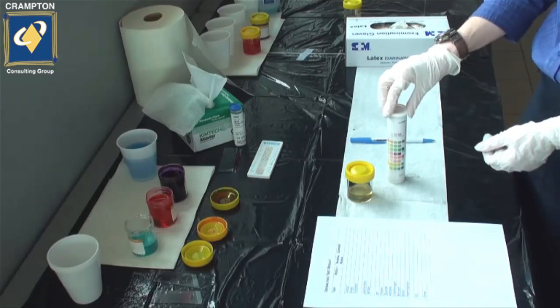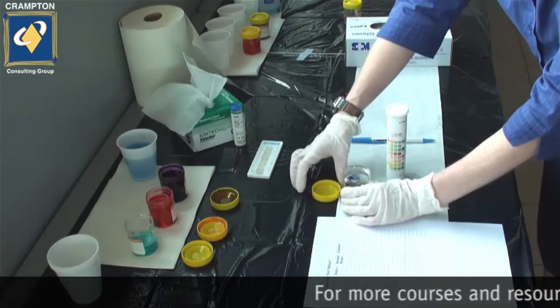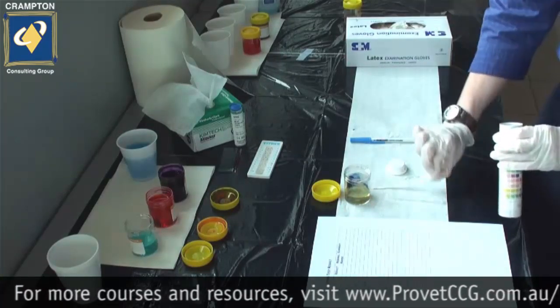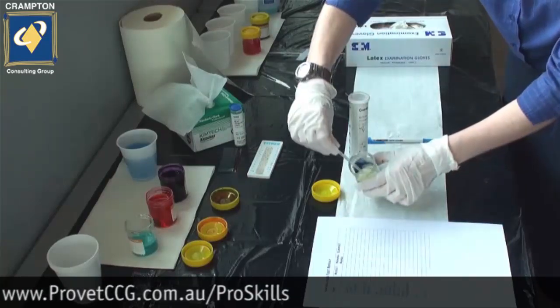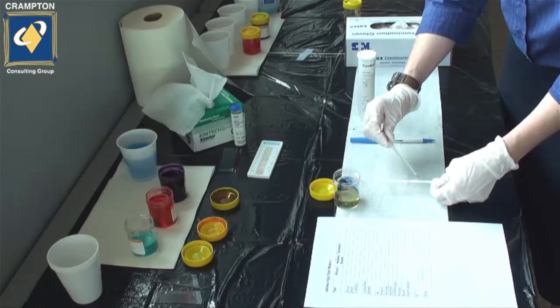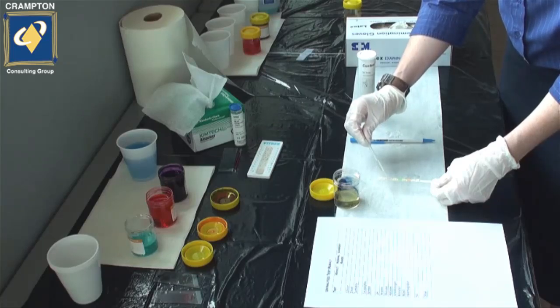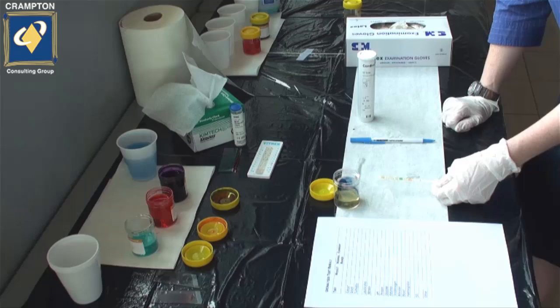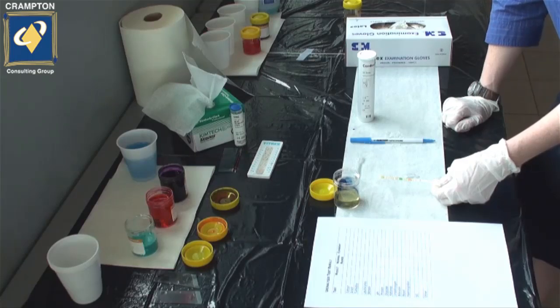Wearing your PPE, as we are dealing with a biological possible hazard. Remove the lid from your urine sample. Remove a test strip from the pack, ensuring that you don't touch it with your hands. Then fill your pipette with a sample of urine. You can then place a drop individually on each test pad. Wait the allocated time and then tip the excess urine into a suitable receptacle, whether that's a kidney dish or it's tapped onto some absorbent material.